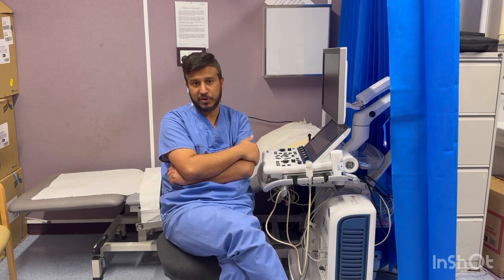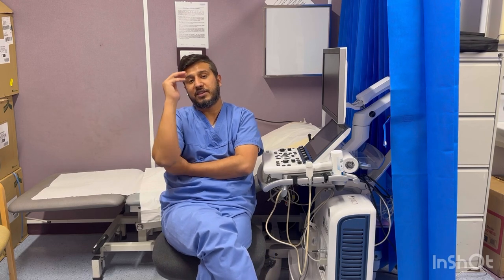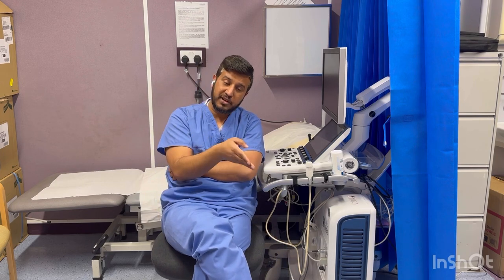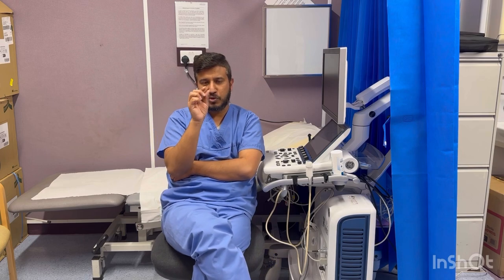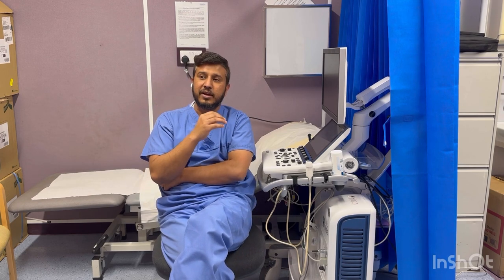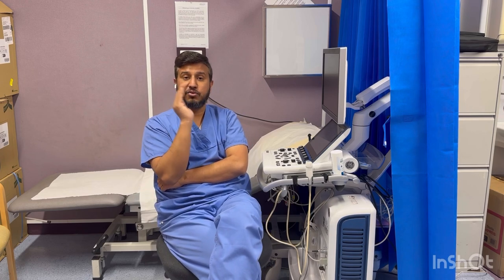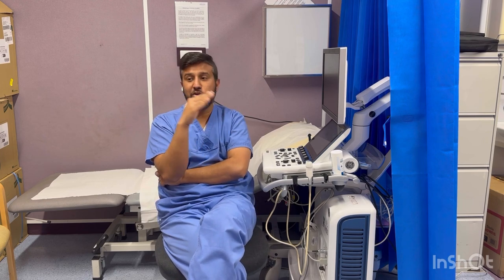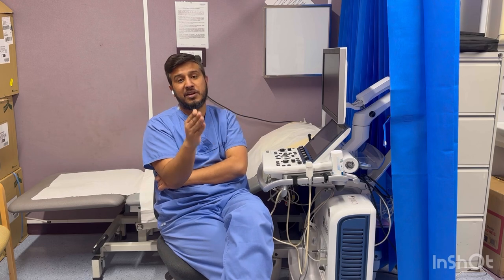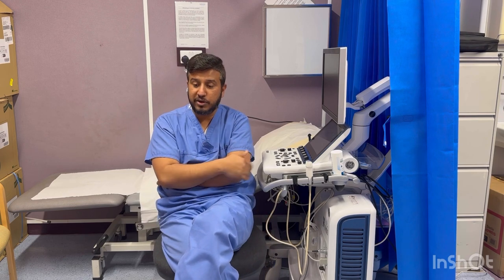Aliasing occurs when the velocity exceeds the Nyquist limit. The Nyquist limit is the maximum velocity measurable by pulse wave Doppler. So whenever we want to get the highest velocity, we need to use continuous wave Doppler. The limitation of continuous wave Doppler is that when you place the cursor, it gives you the highest velocity all along the cursor line — you can't detect exactly where that velocity is occurring. To detect a specific area's velocity, use pulse wave Doppler for low velocities, and continuous wave Doppler for high velocities.